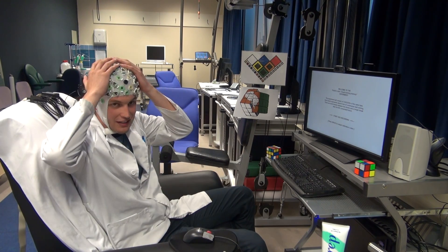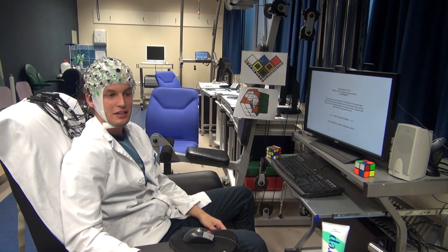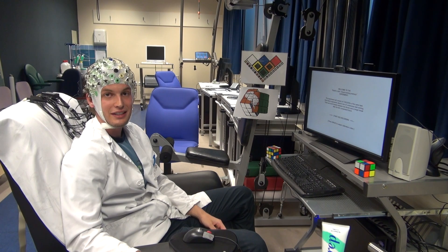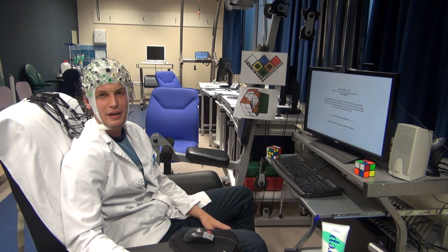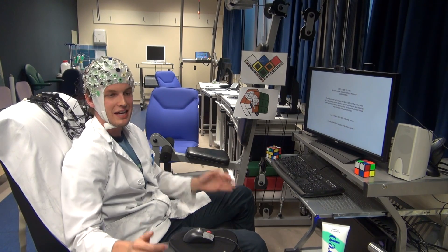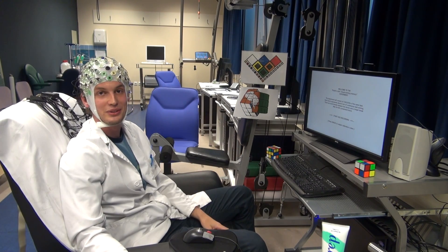EEG, by the way, is this cap that I have here and it is just a measurement of the electricity in the brain and it is completely painless and you will not have any side effects. I am wearing it and I feel really, really good and comfortable.